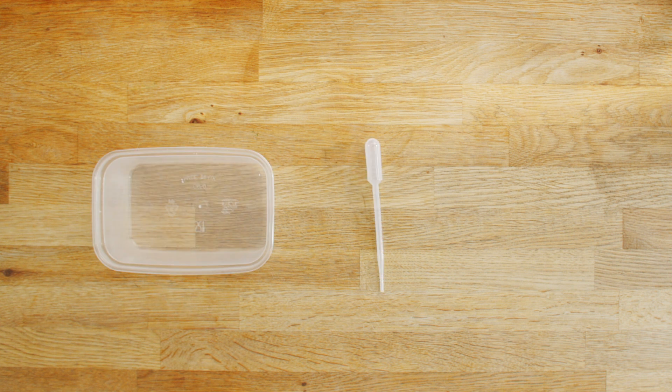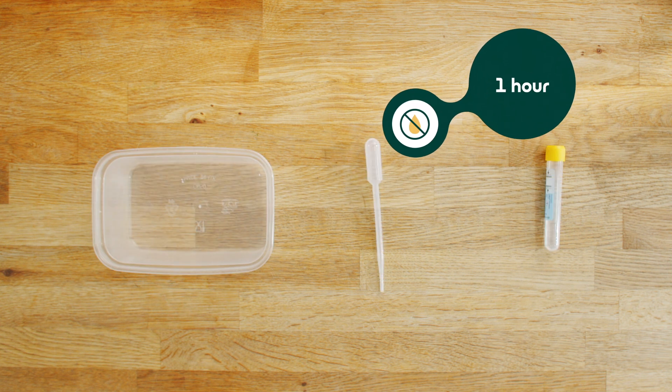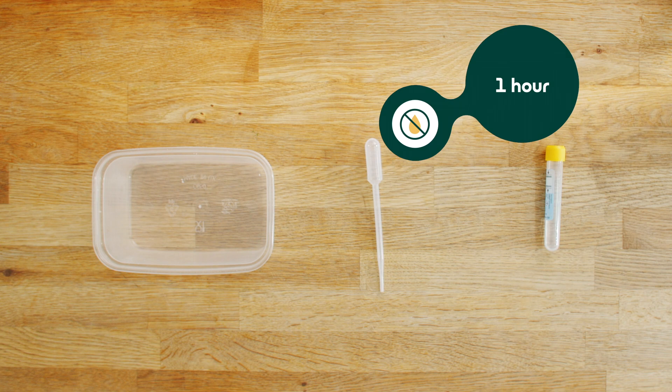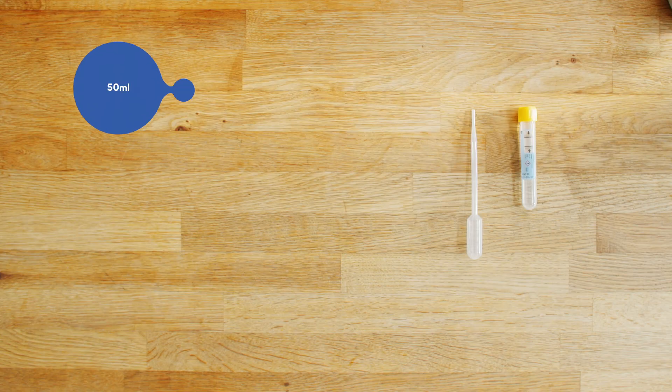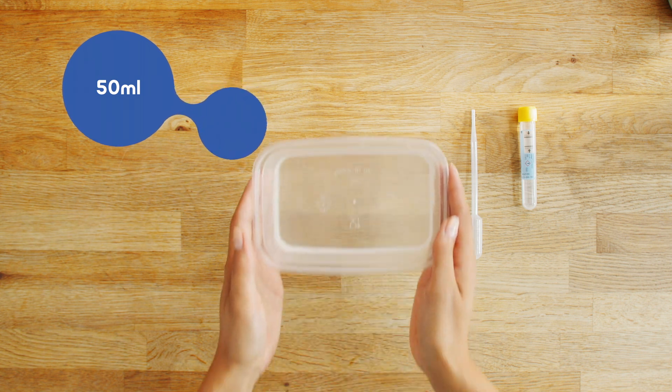Now it is time to collect your urine sample. Please note, you should not have urinated for at least one hour before taking your sample. Wash both your hands in warm soapy water. Pass up to 50 millilitres of urine into a clean container.